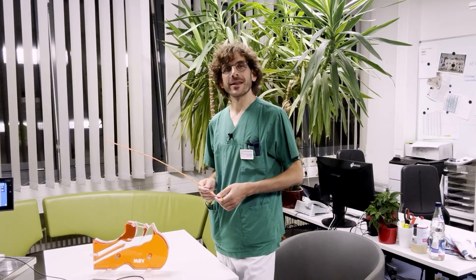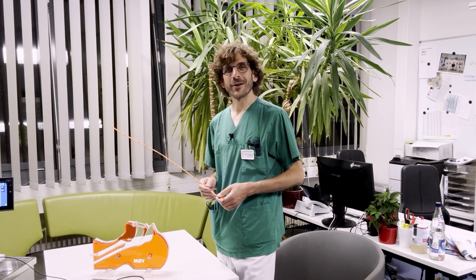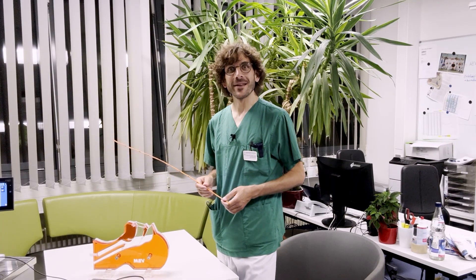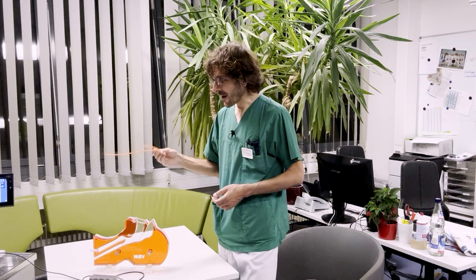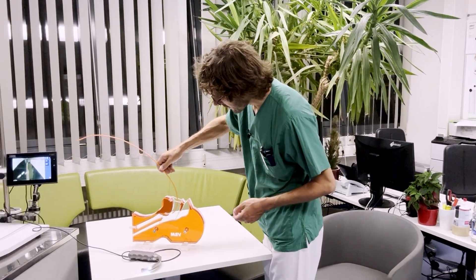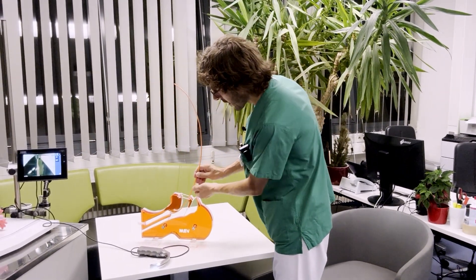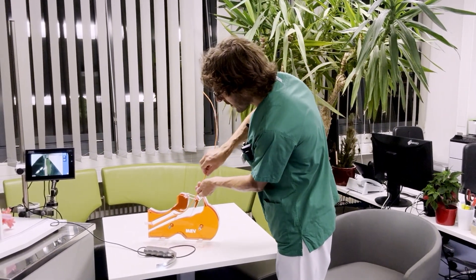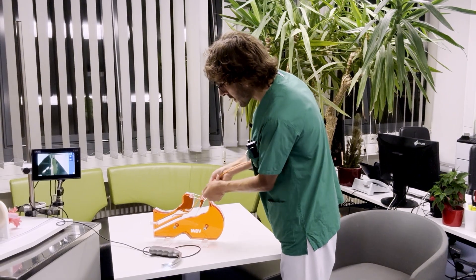So what we need now is what Sean Runnels calls the Serpentine Movement. Our device has to move like a snake around the tongue and then down into the trachea.